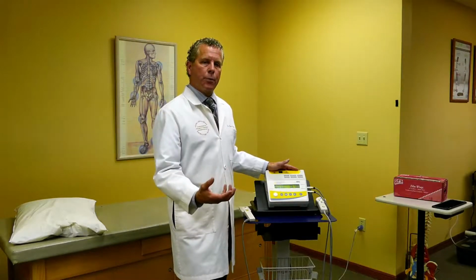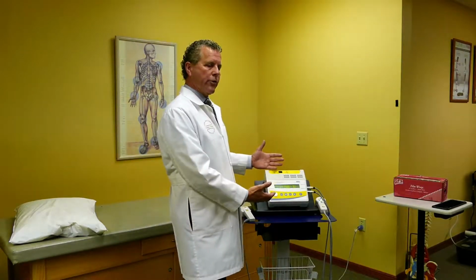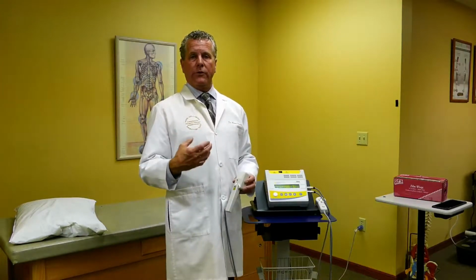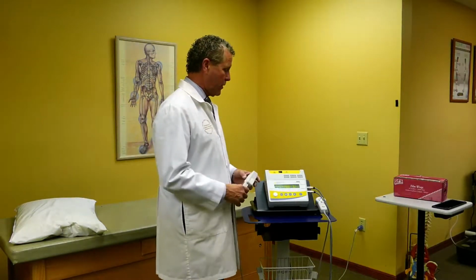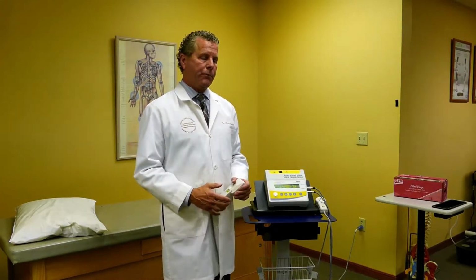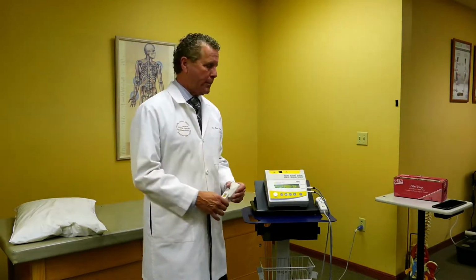So when they come to your practice and you're using laser therapy on them, as we know, they feel nothing. They very seldom hear anything. So there's a lot of doctor or therapist-patient trust. With this doctor-patient trust, you have to explain why we're using what we're using. So again, the best patient is an educated patient.